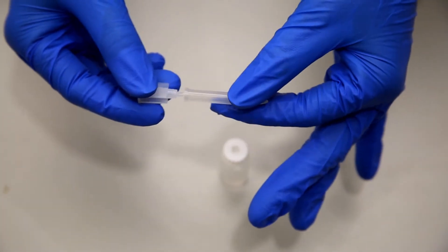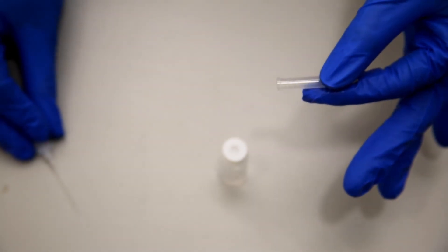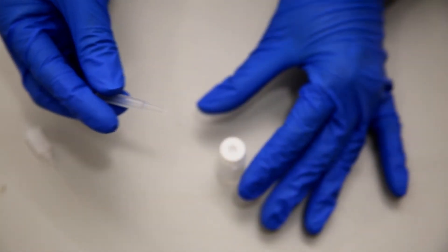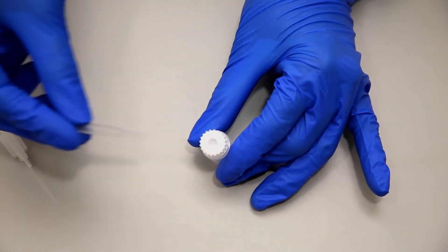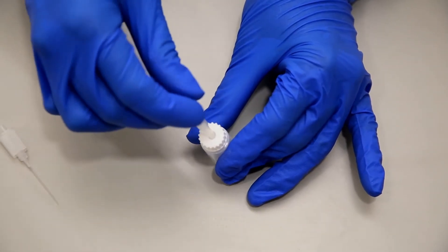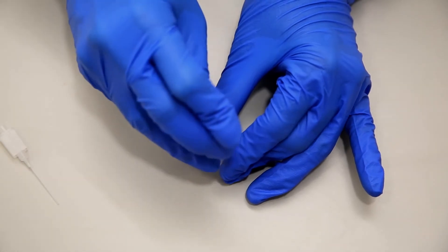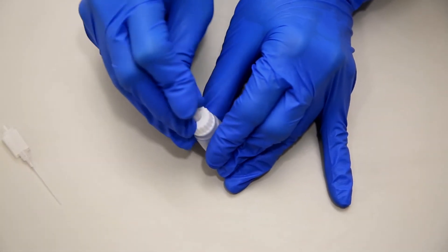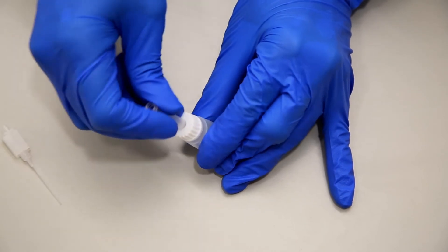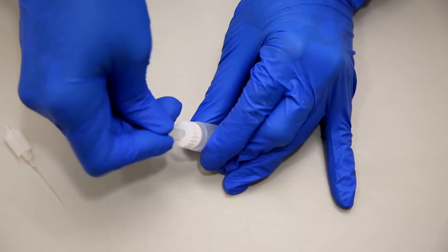Remove the pipet from the shield. To dilute the specimen for analysis, the reservoir is placed on a flat surface. While grasping the reservoir with one hand, take the pipet assembly in the other hand and push the pointed end of the pipet shield firmly through the reservoir diaphragm as far as possible to ensure an opening large enough through which the pipet fits.